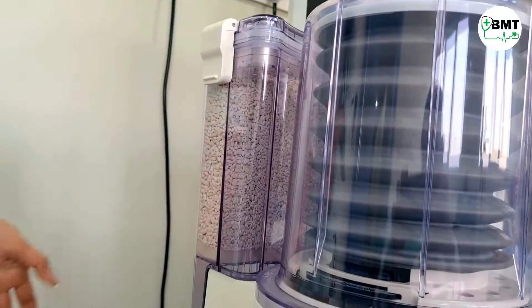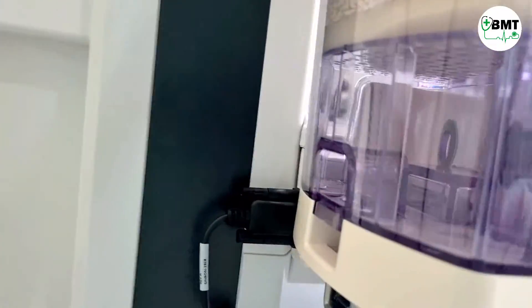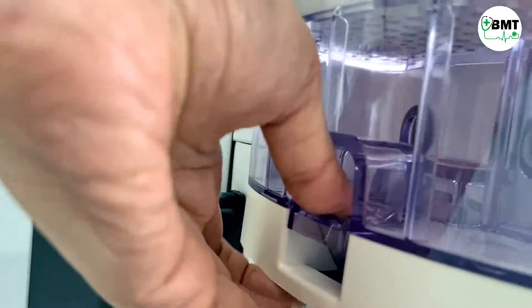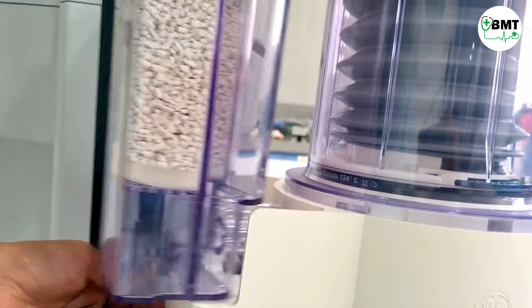To remove the canister, there is a lock over here. Press it and the canister will come up.